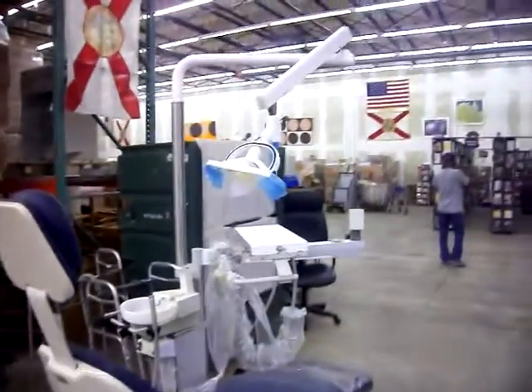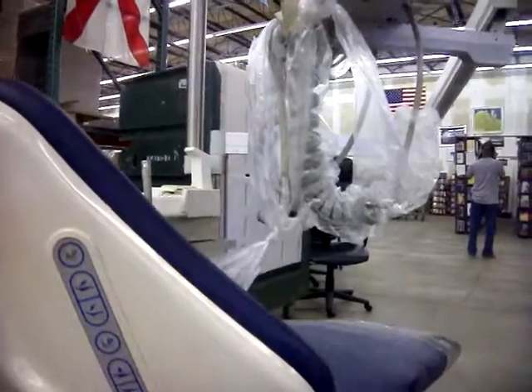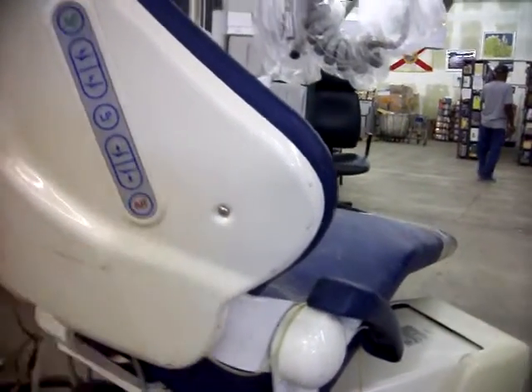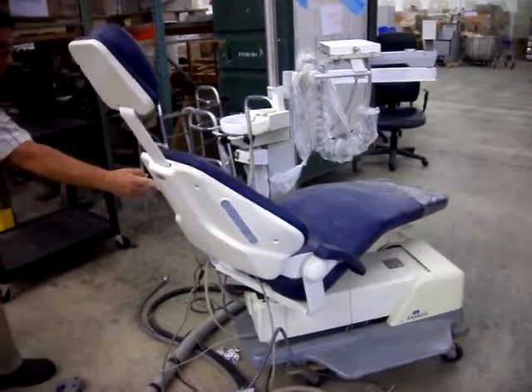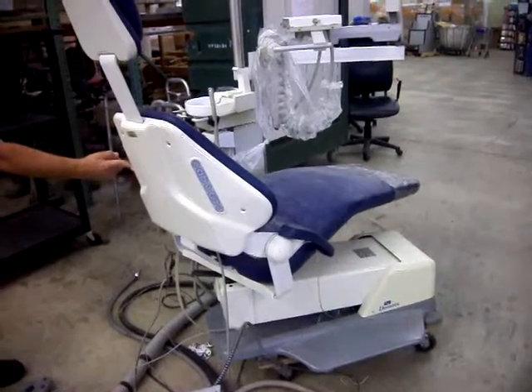The light is working, as you can see in the still pictures. Now I'm going to show you how the chair works with the buttons on the back — going down, going forward again, up, right, up.